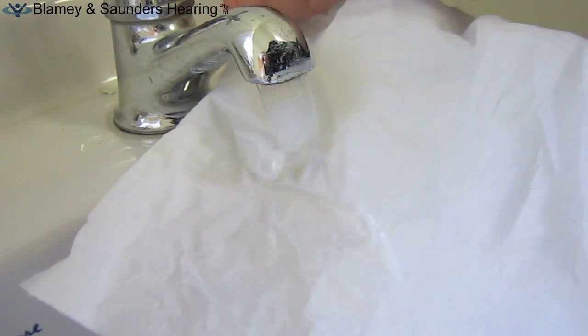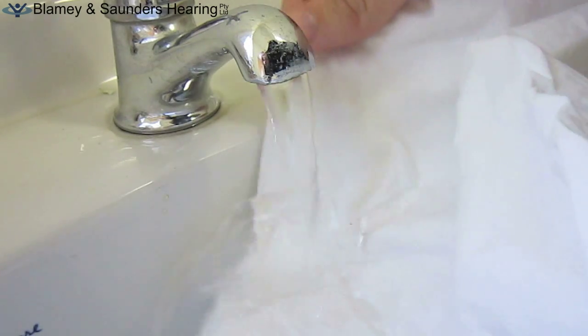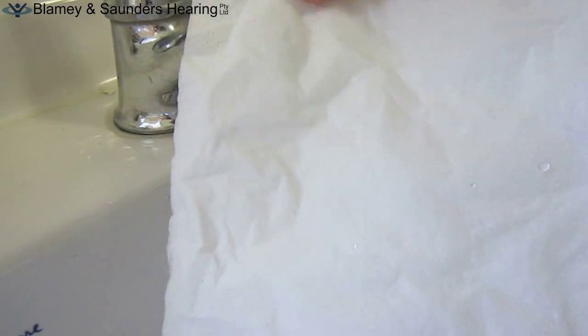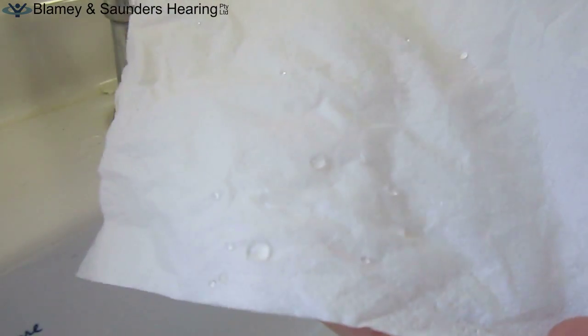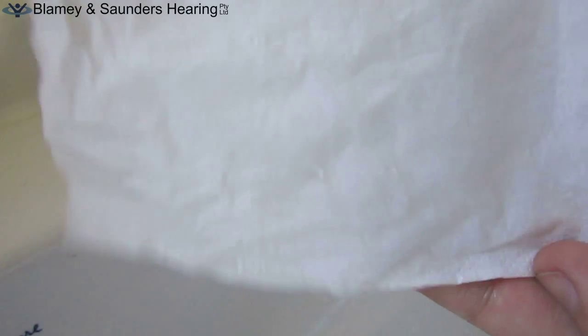In the third clip, I place the tissue coated in the hydrophobic nano water repellent under running tap water. As you can see, the water runs off the tissue. It's really amazing. A few drops bead on the tissue but are easily shaken off.